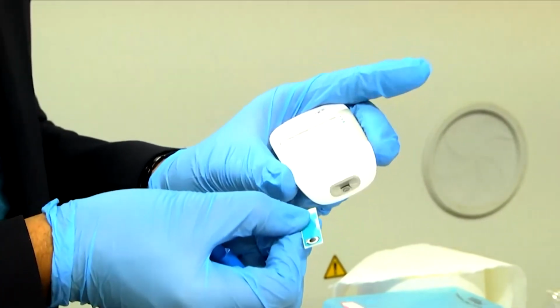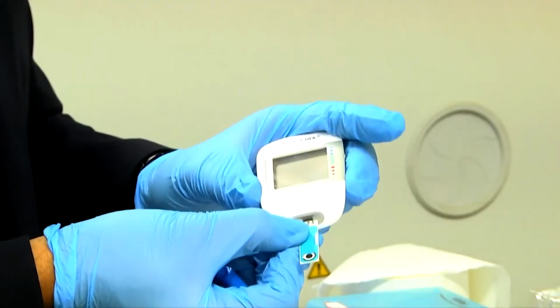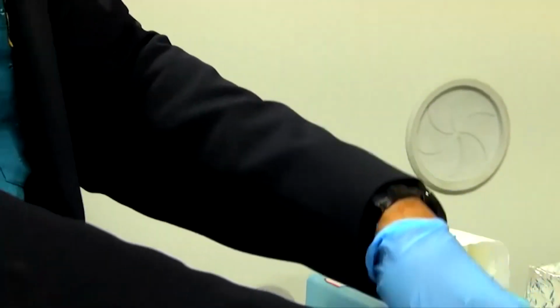You understand the technology here, right? Very simple basic things. If it is a cancer detection chip, it can detect cancer. This is the main basic principle.